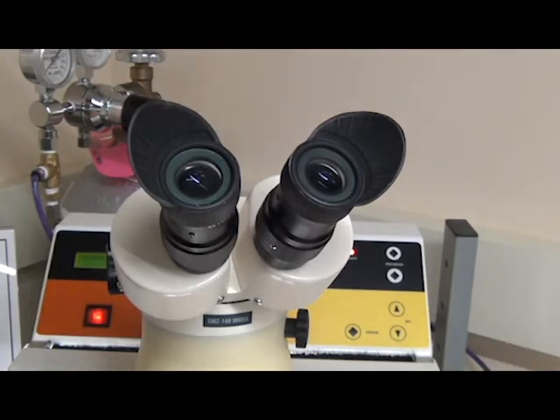The first program is for two titanium samples. Second is for non-precious alloys. The third program is used for precious alloys. The fourth program is used for precious and non-precious alloys. The fifth option is free selection.